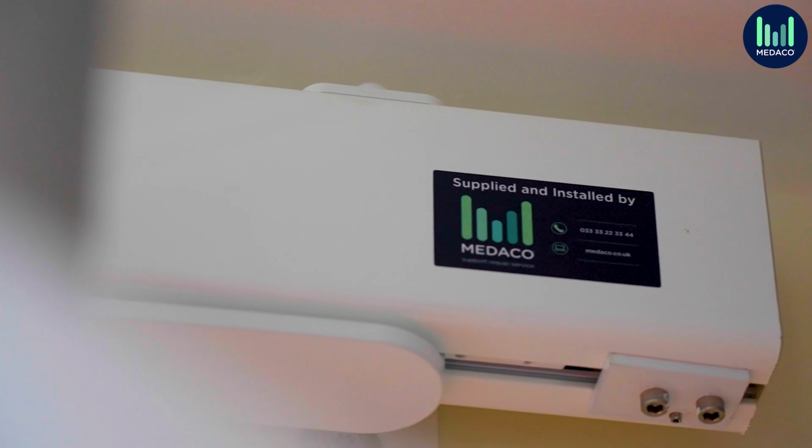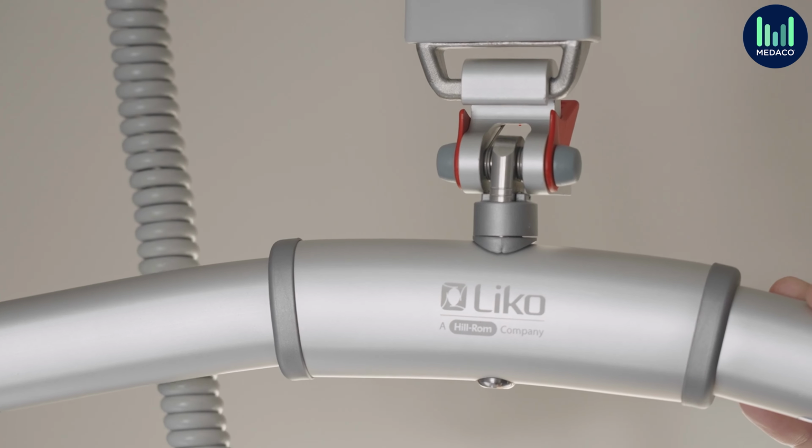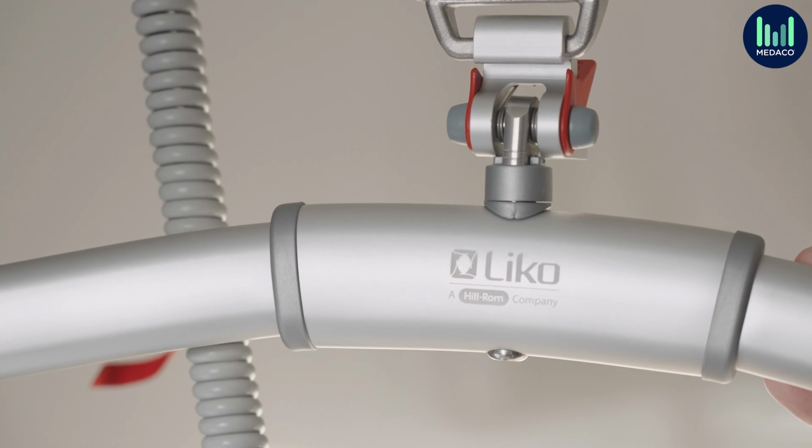When you are needing to enable a service user to move from one room to another, i.e. from a bed to a bathroom, a room-to-room system is an ideal option for this. This design utilises having 2 different tracks situated in each of the 2 rooms with a motor pod for each track. This system also allows for transfer without ever touching the floor.